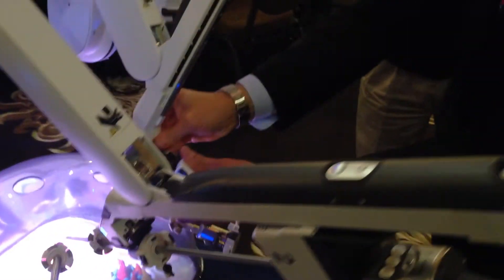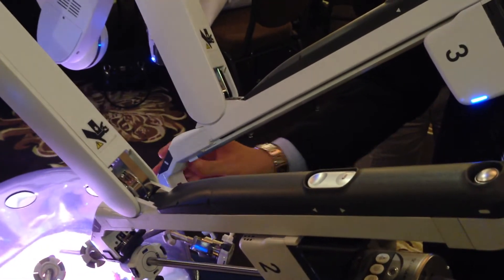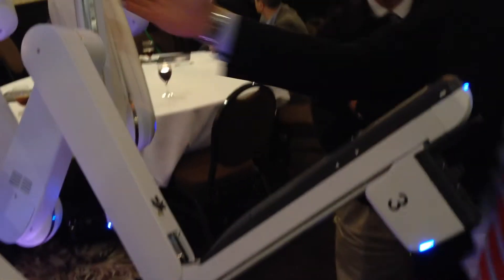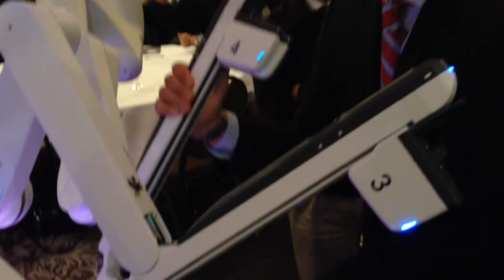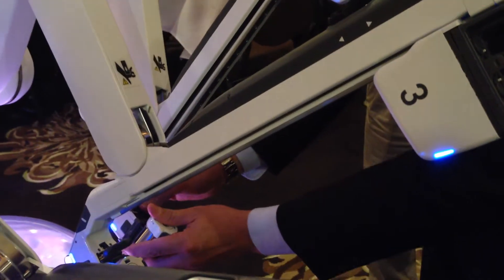Connect the rest of the arms. So now I grab here, grab and move, come down, and dock. Making sure that, just like any traditional robotics, we're in the remote center. Dock this arm. Grab and move. As you can see, the docking can be extremely efficient.